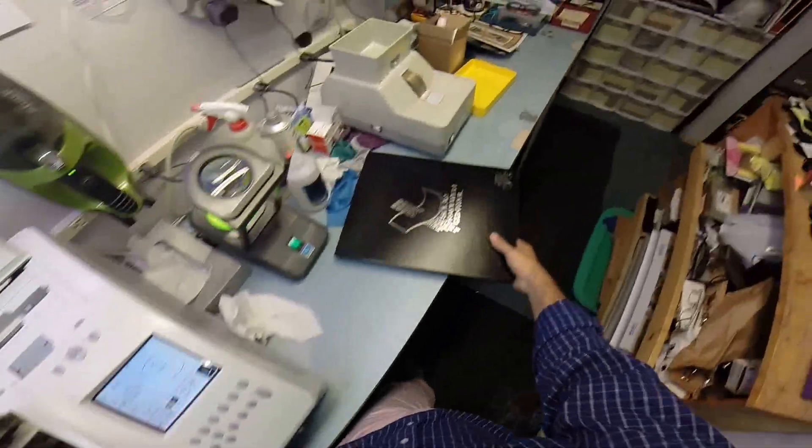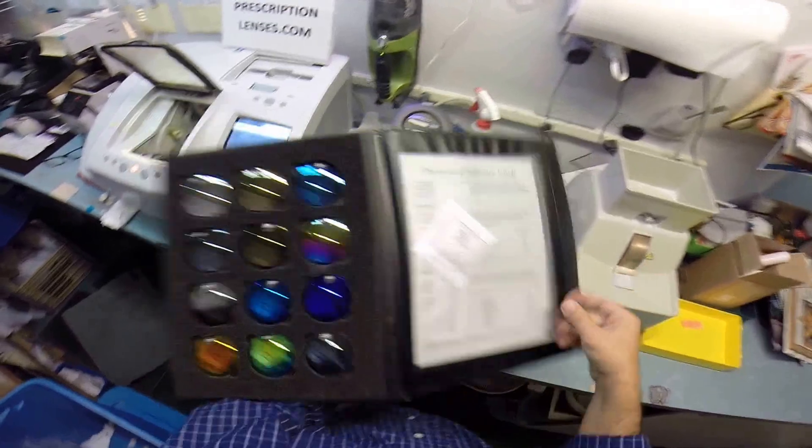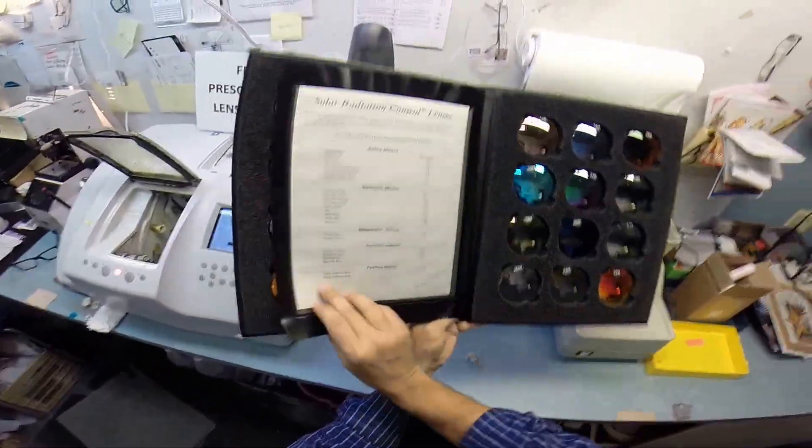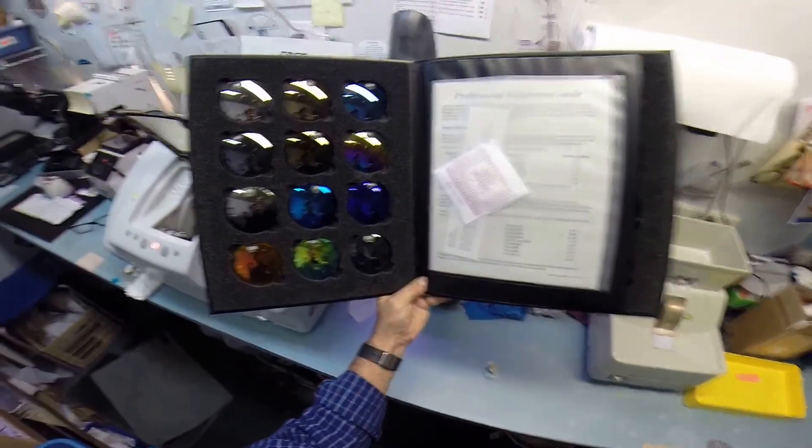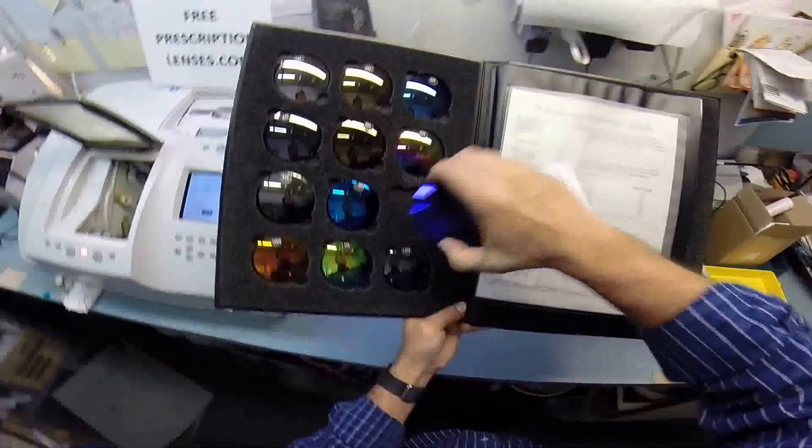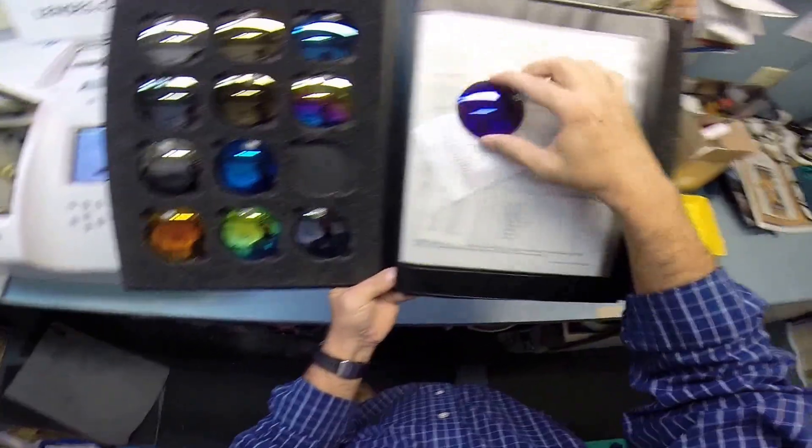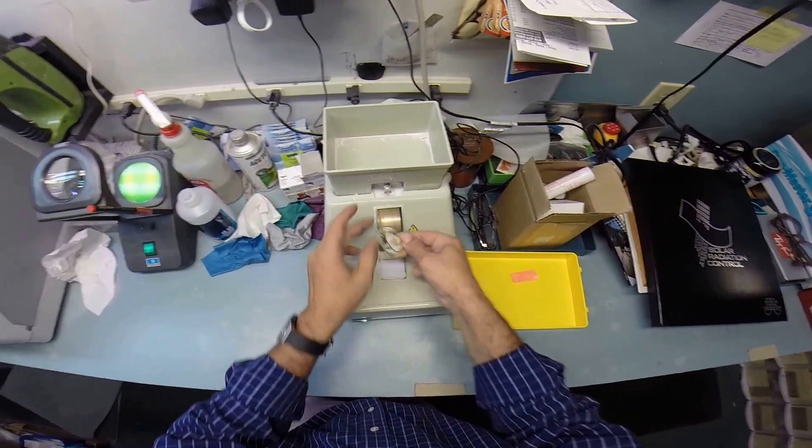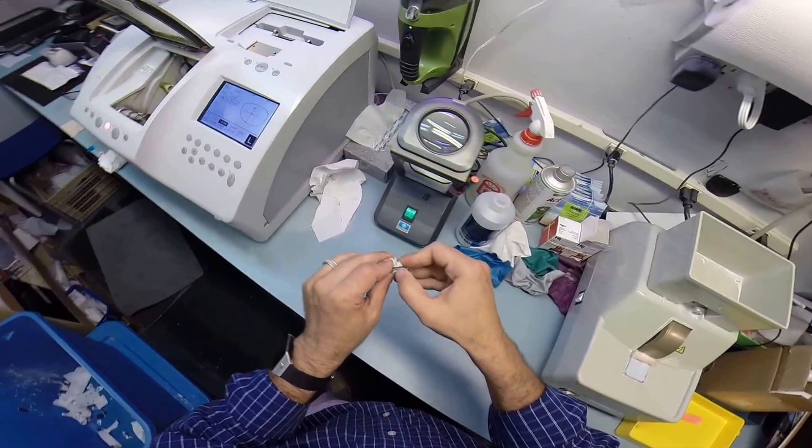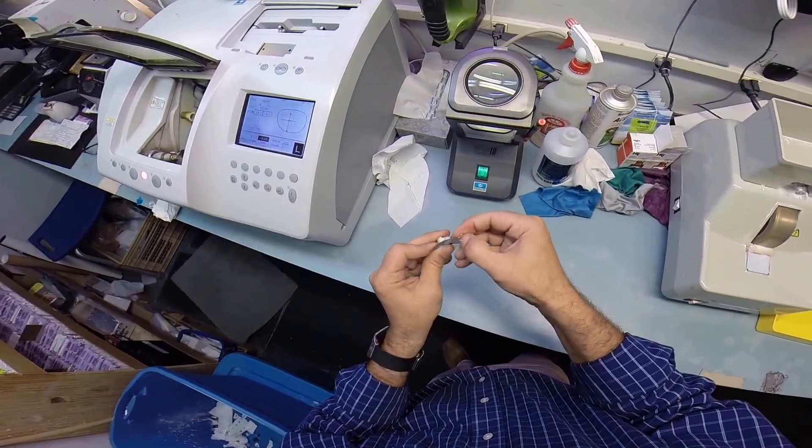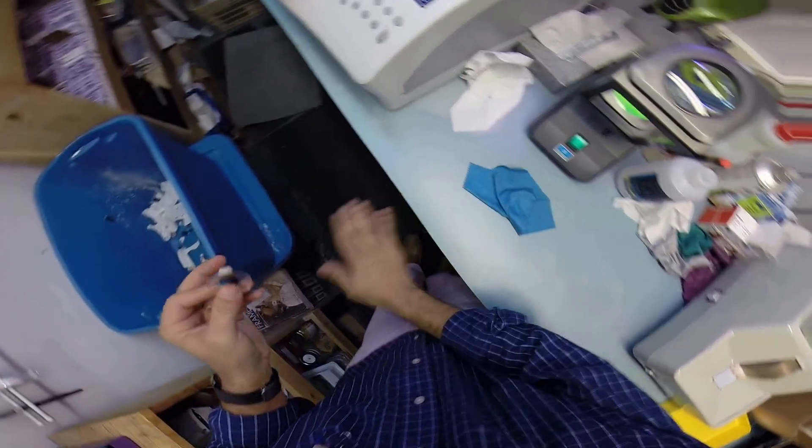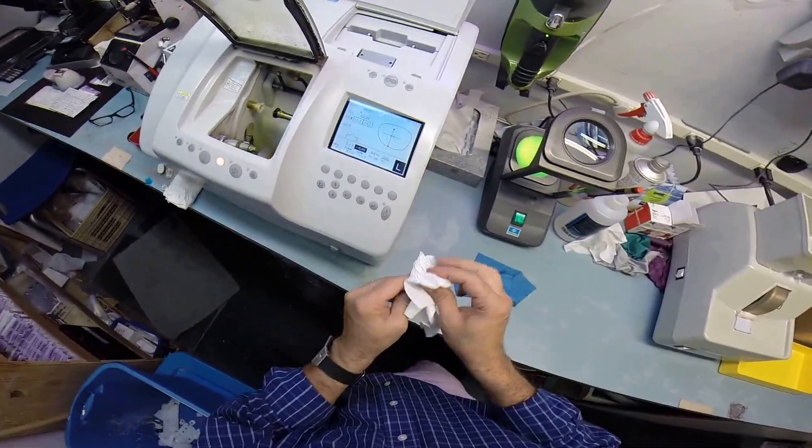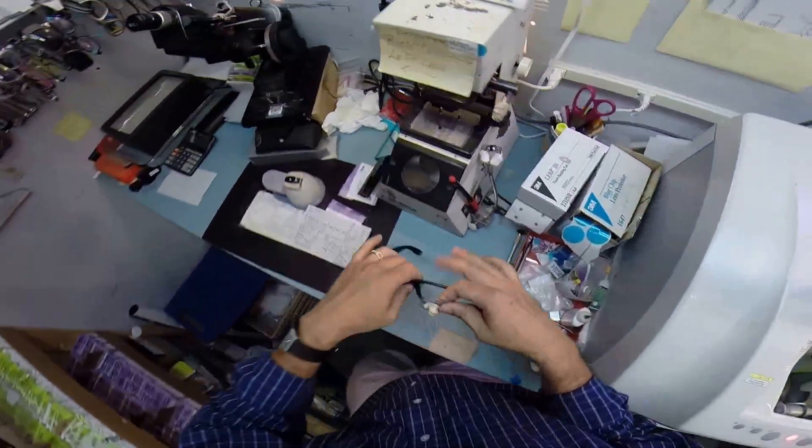By the way, since you asked for this, this thing cost me a hundred bucks. I hope you're happy. So I'm going to charge you an extra hundred when I do your mirror lenses. I'm just kidding, dude. What about the purple? Ladies, ladies, anyone out there want that purple? So back to the hand stone real quick. Smooth out those rough edges. Back to the thumbnail real fast. Back to wiping that on the floor. Dry your lens off real quick. Let's pop this into your black rock.